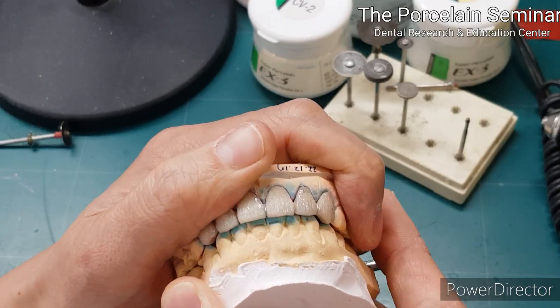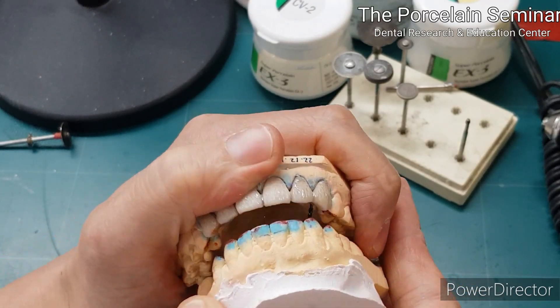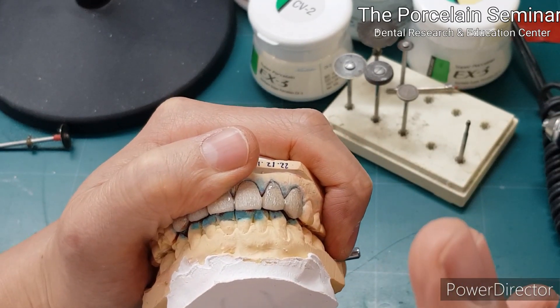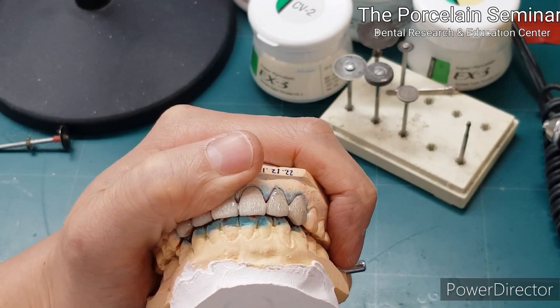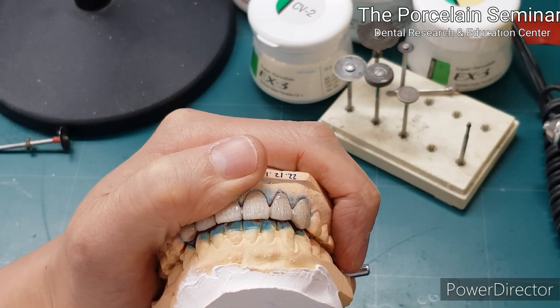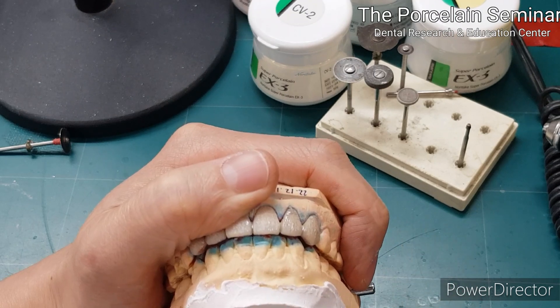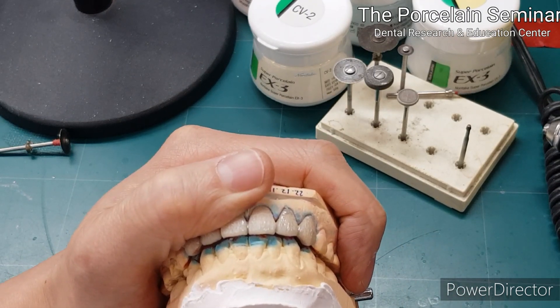그게 중요해요. 그런데 기공사들 뿐만 아니라 치과 의사들도 하면은 그 모든 교합이 들어가 있느냐? 그렇지 않다는 얘기예요. 우리가 각각 어느 위치에서 PT고, 어느 위치에서 LPT고, 어느 위치에서 RT고, 어느 위치에서 ISS가 반영되고, MT가 반영됐고. (That is important. Not only dental technicians but also dentists — does every occlusion apply? The answer is no. Each position determines where PT, LPT, RT, ISS, and MT are reflected.)